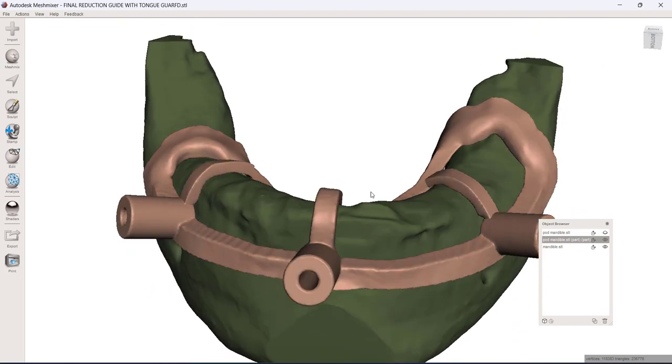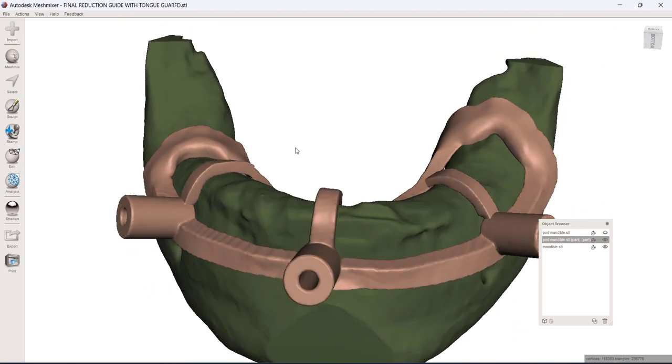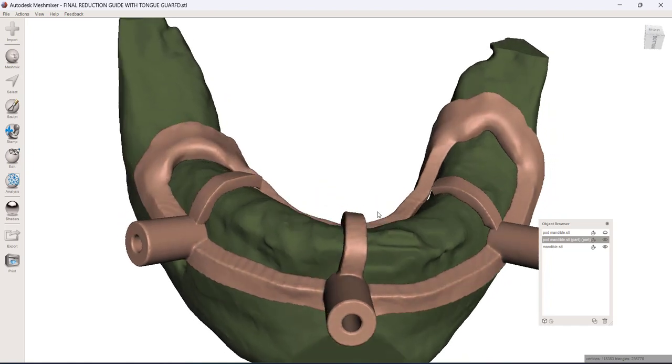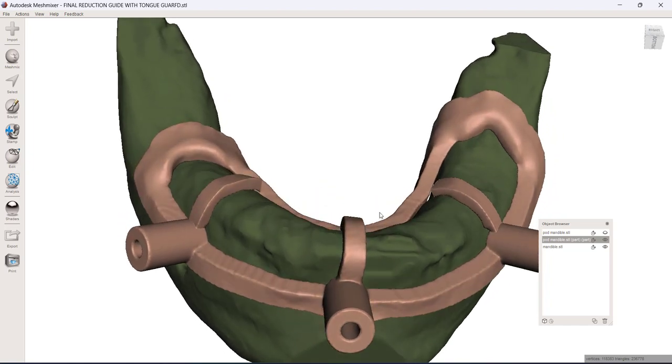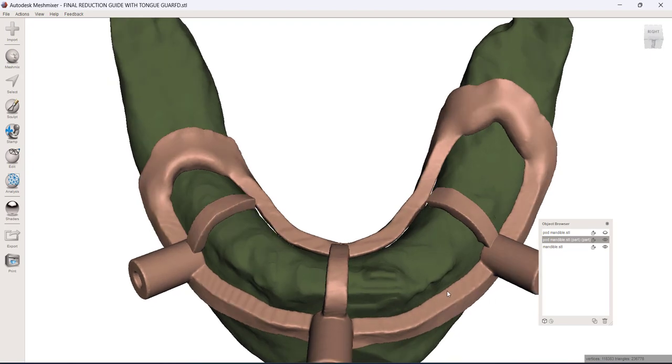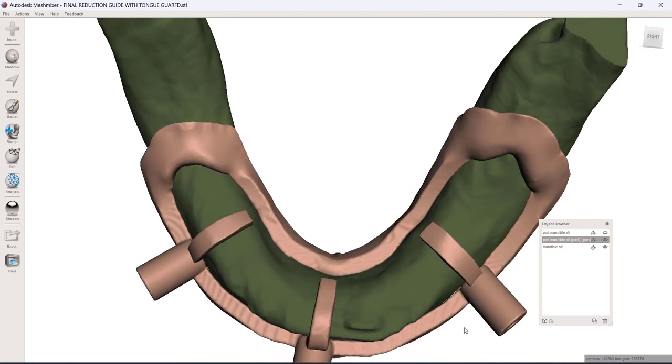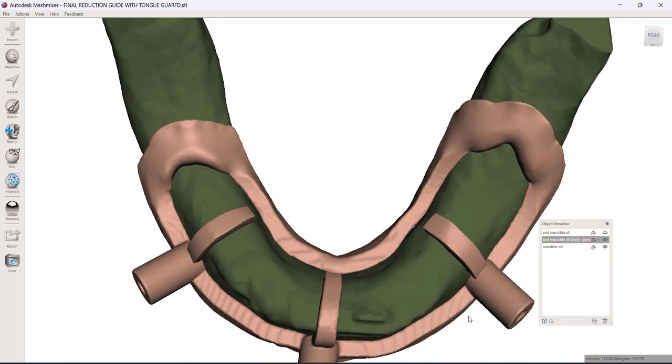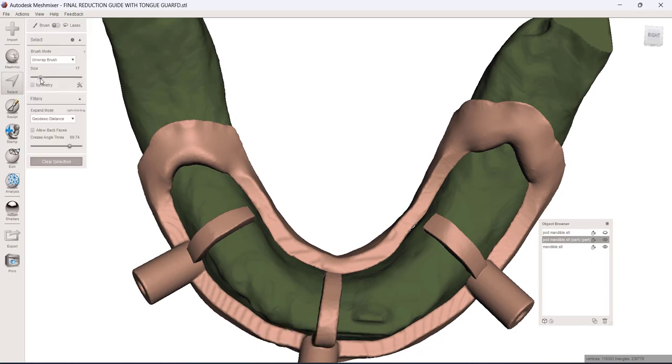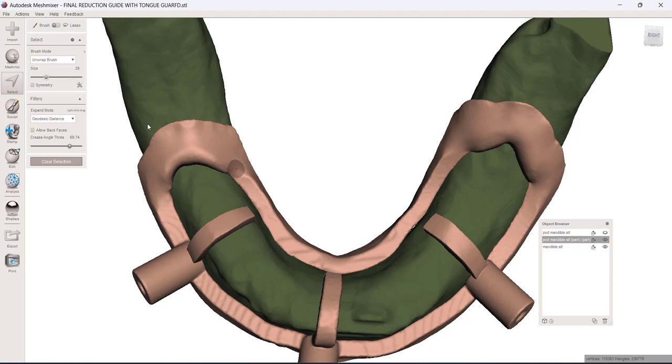And then secondarily, the tongue can wander up there again. It can just make visibility difficult and it just gets in your way. You can wrap that up in the burr too. So what's a quick and easy way that we could build in some sort of retraction for that lingual tissue and the tongue. I've done this on occasion. This is just a simple way that you can do this.